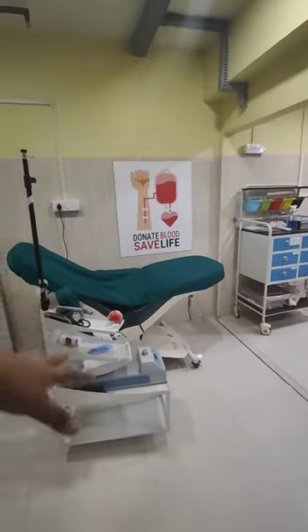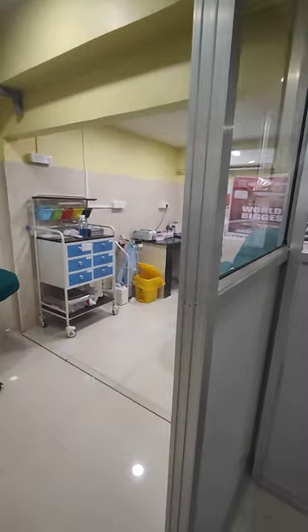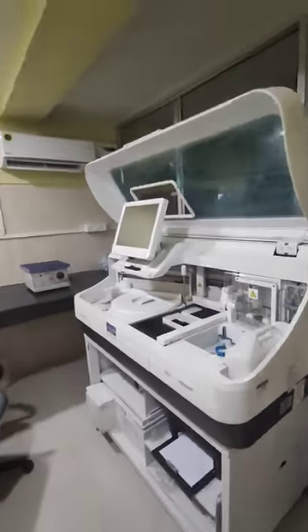We need to donate our blood. Today, there are many donors. We need to donate and document our blood. On the second area, this is a machine — I have no idea about it.